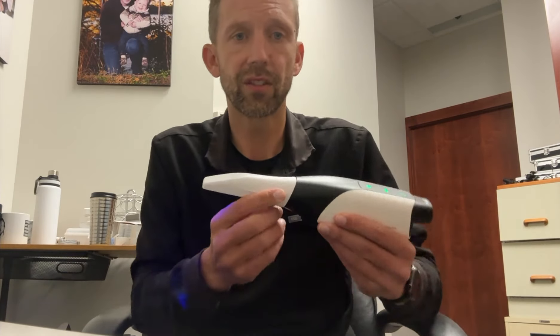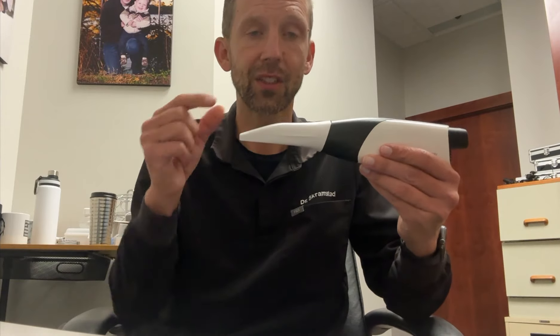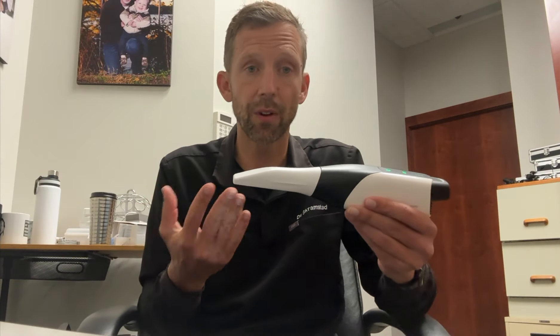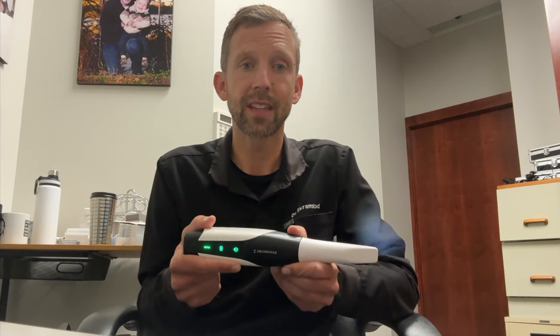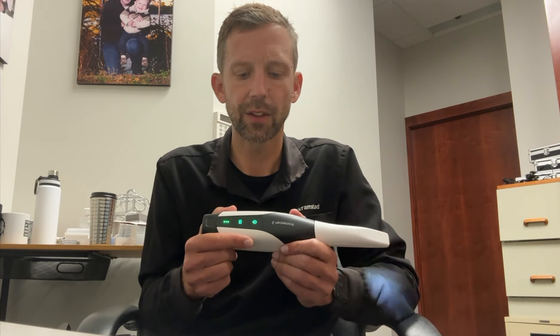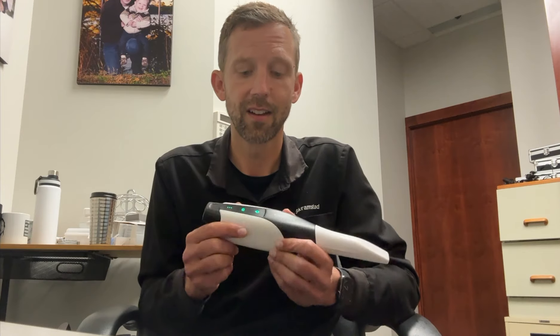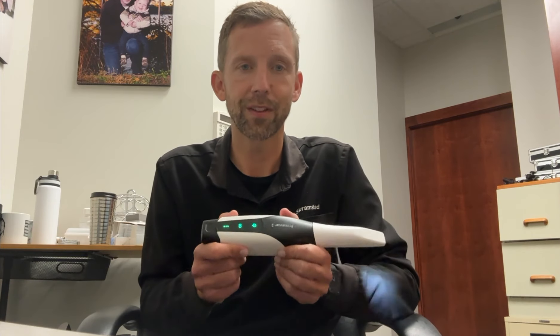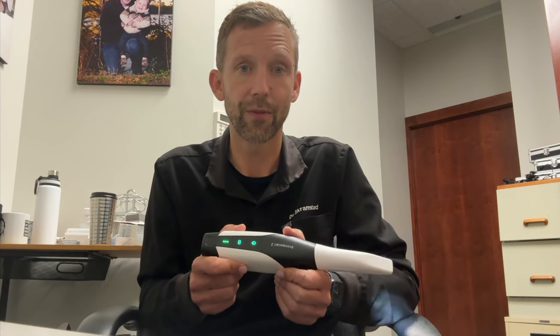It's just been a wonderful advancement. You can see the tip is actually smaller, so it's easier to scan with. My staff has enjoyed it more — it's just easier on every level. So be excited about PrimeScan 2, the first ever cloud-native wireless scanner on the market. It's going to be highly successful and it's really changed how I do things in my office. Have fun with the PrimeScan 2. I know you're going to love it and I look forward to seeing you all very soon.